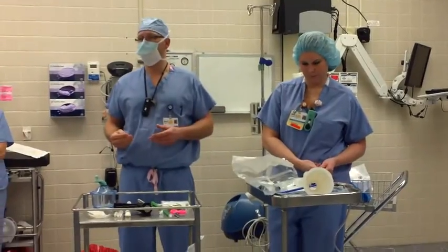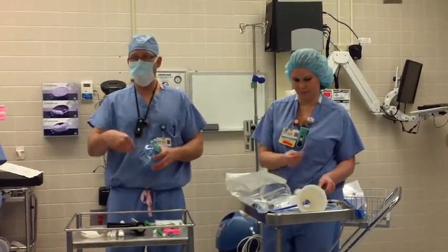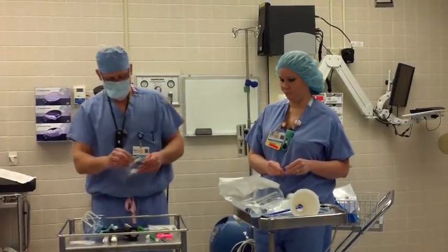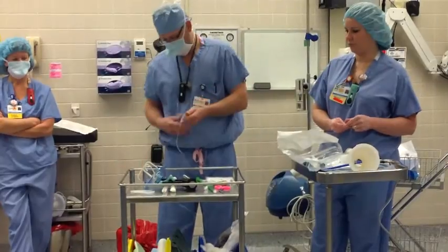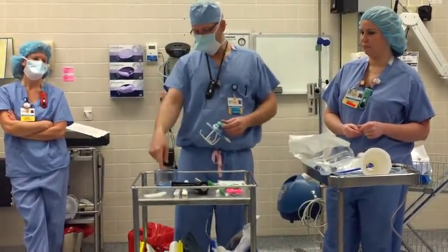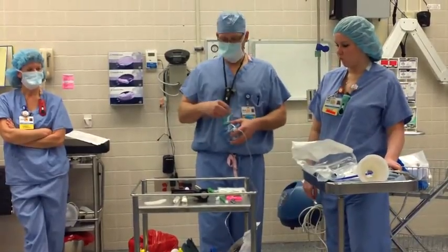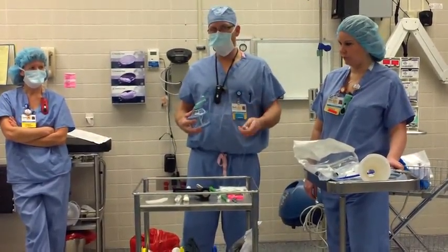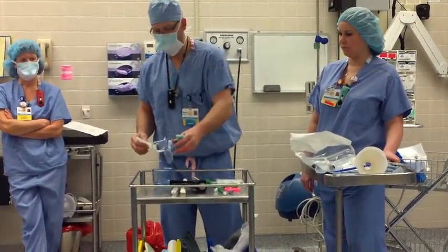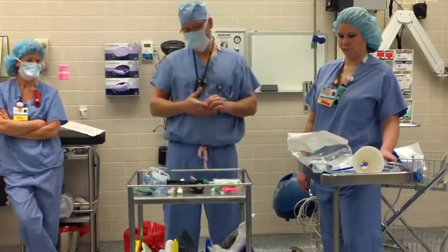So now your cement's in and you're pressurized. There's no difference in how you mix it with this mixer — this is the mixer we use on total knees. There are also mixing bowls; you can mix this by hand just like you do cake batter. This mixer pressurizes a little differently. You'll drop this, untangle this and drop it off the peel, and this plugs into this little port. Make sure you know which end goes down. With these spatulas, you mix the cement the same way — dump in the liquid and the powder, put this on, turn it and lock it, pressurize it to 20, and start for a minute and a half to two minutes. Then you just unplug this and it depressurizes — drop it on the floor and you're done. Open this up. I usually scrape all the extra cement off of this because you always want to keep as much cement as you can. Then hand this to the doctor and they'll use it on the joint components.